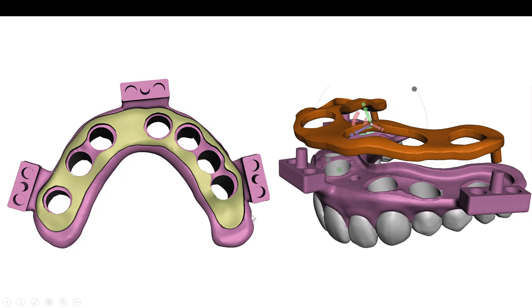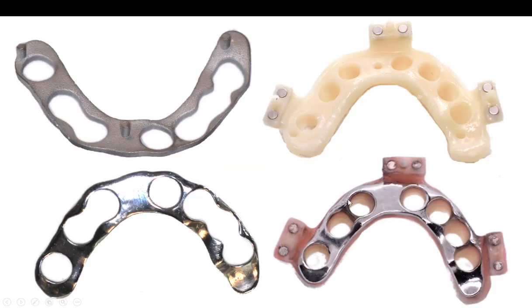This being just printed material, you can stretch a hole one way or another. Even if you have to deviate and go to another site, this metal reinforcement is only about one and a half to two millimeters thick. So let's say you ended up putting an implant in a different site — it'd be a pretty easy task just to drill a circular hole in that metal framework and then punch through the printed material. You could pick that up, but you still have a very strong temp because the entire underside is supported by this big chrome cobalt bar. The magnetic attachments get built into the printed portion.